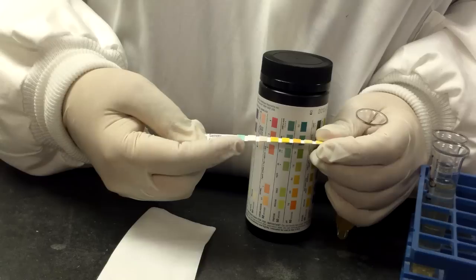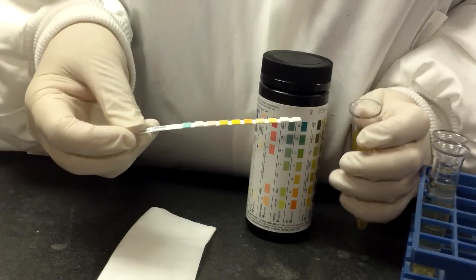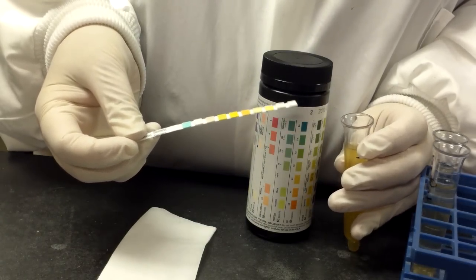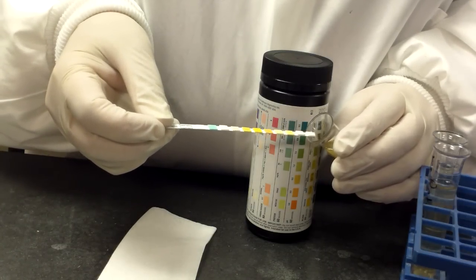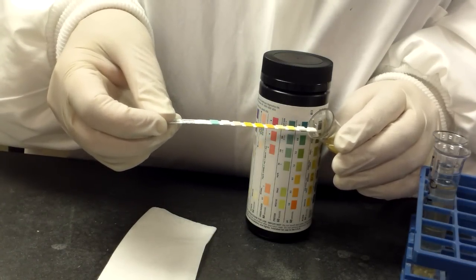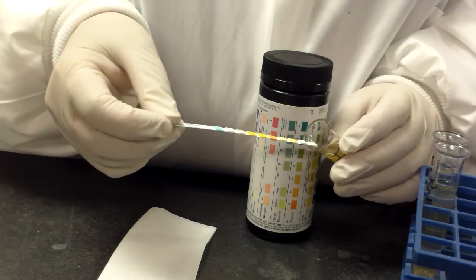This is your first strip. This is the glucose one. So you want to make sure all of those get wet and you're going to have a clock or a timer that you're going to check. When I dip it using a clock, I tend to like the second hand to be either on the minute or the 12 or the 6. It just makes it easier to follow.